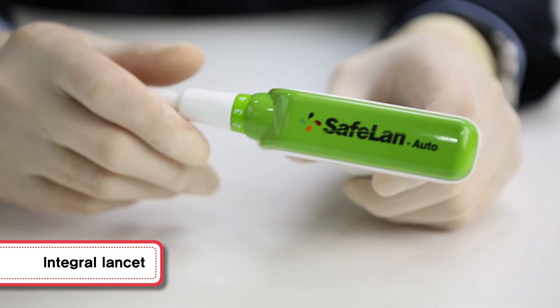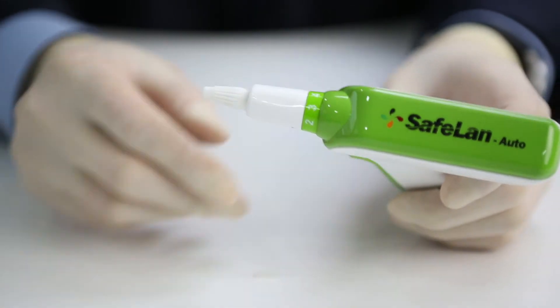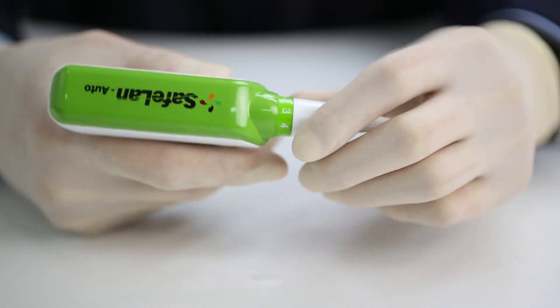It uses a lancet that is designed to integrate the needle stick and the protective cap of the blood collecting device.